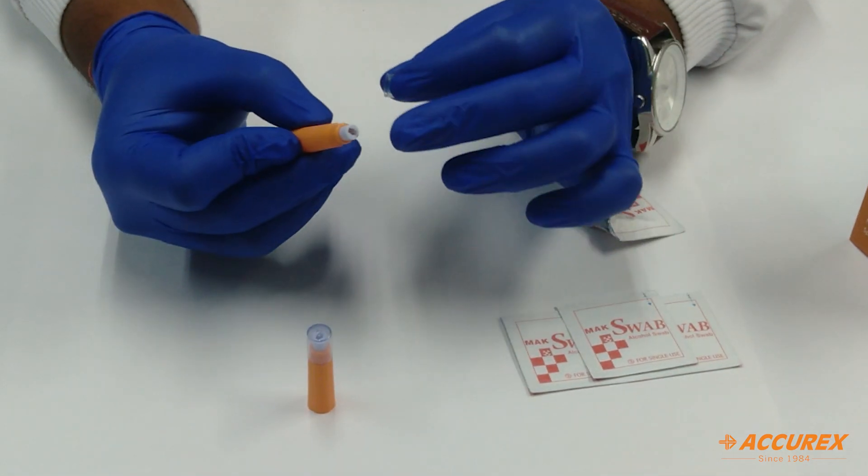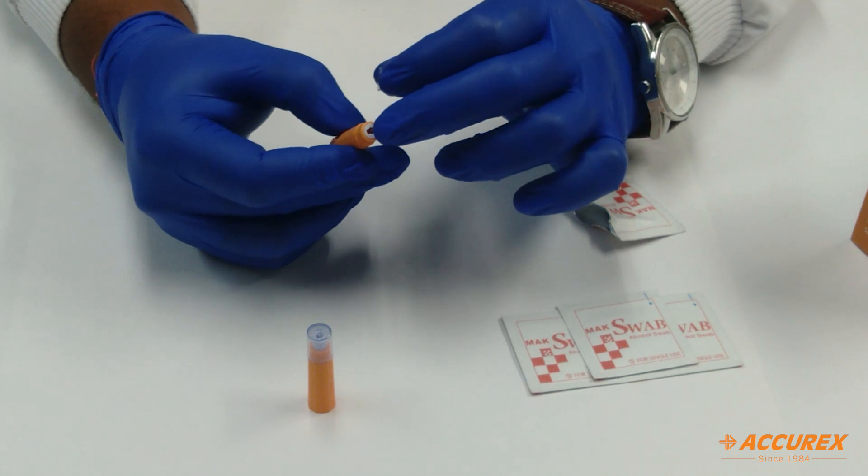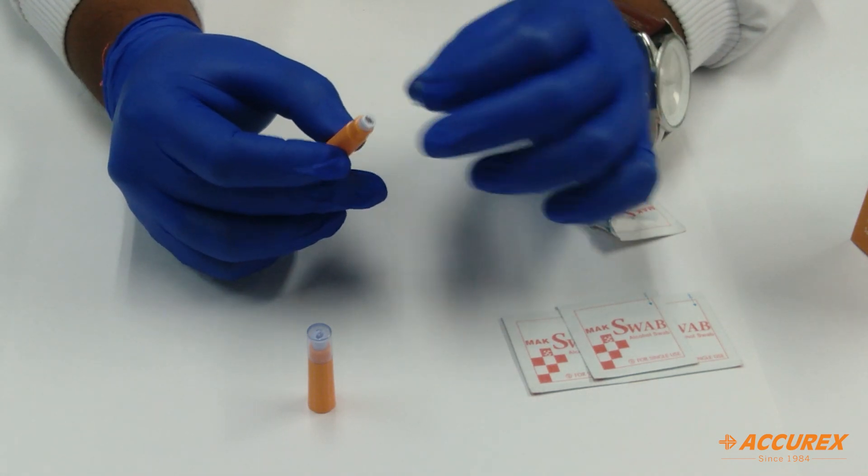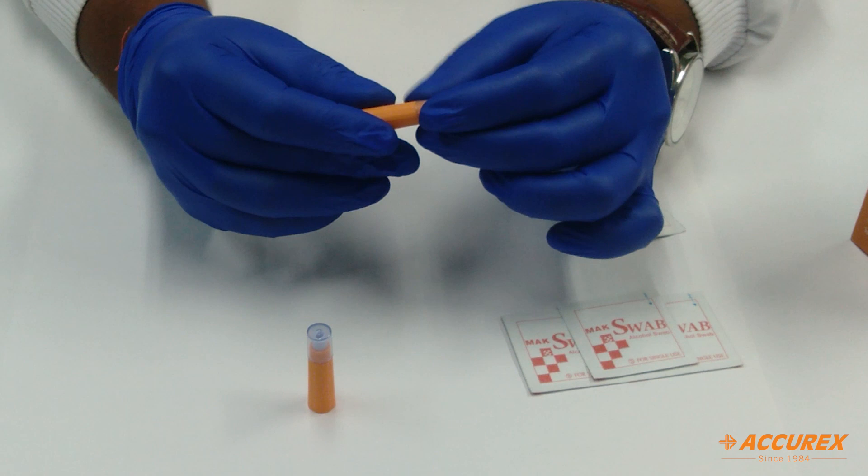This lancet is one time use. Once it is done, you can just cap it up and discard it.